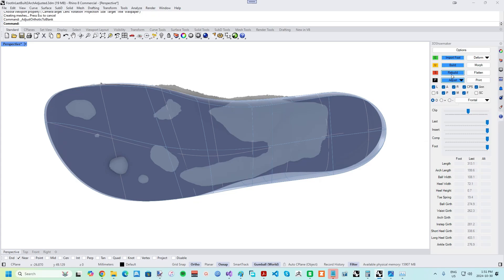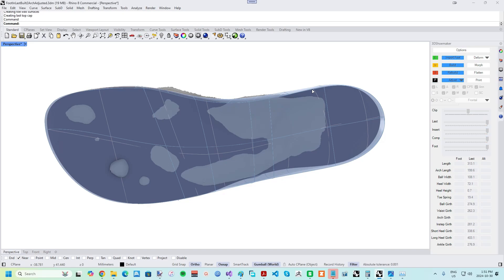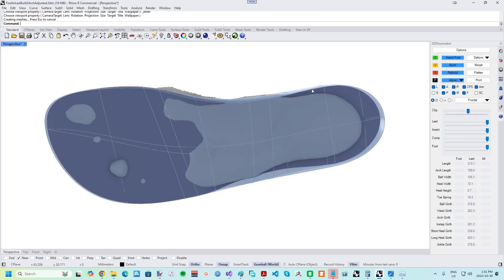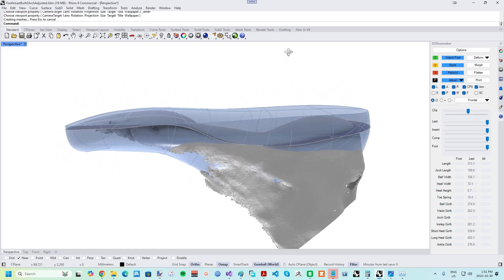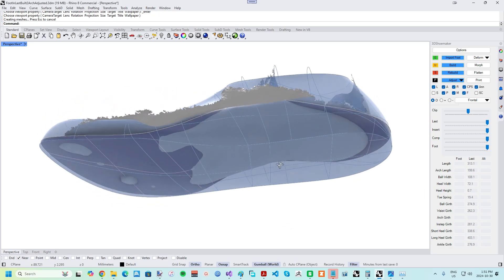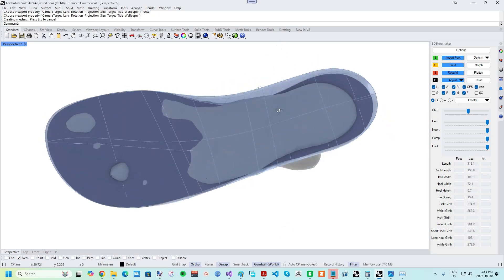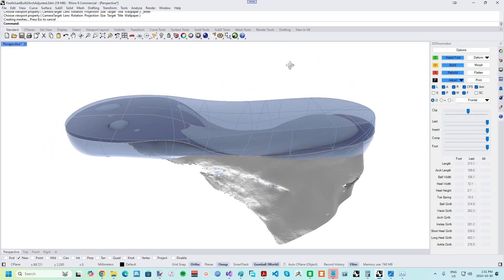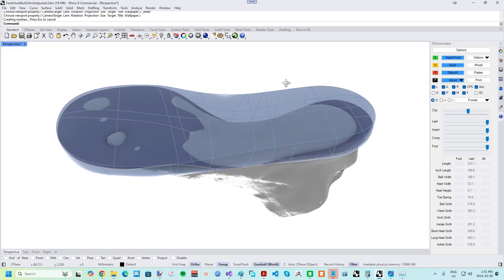If you look from the bottom, you can imagine a rubber sheet is being pulled onto both the foot plantar surface and the orthotic blank. Any parametric orthotic model can be converted into a blank by the Adjust Orthotic to Blank function found on the Adjust drop-down. Of course, you could also develop a set of your own orthotic blanks and use them as templates in the first place.